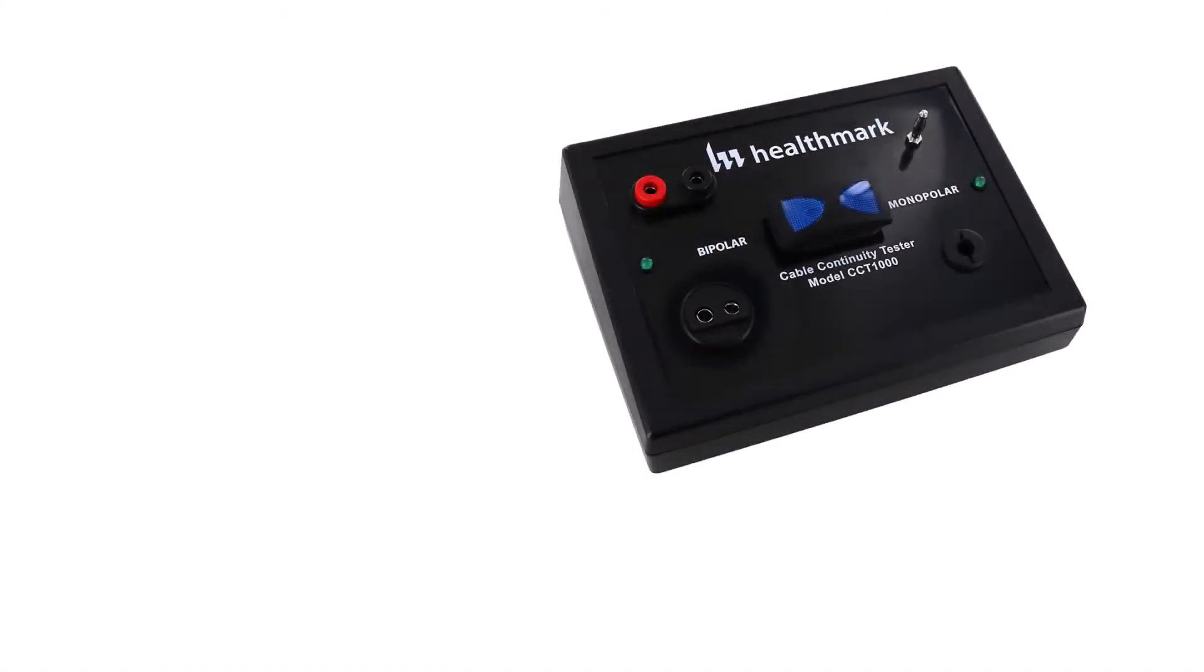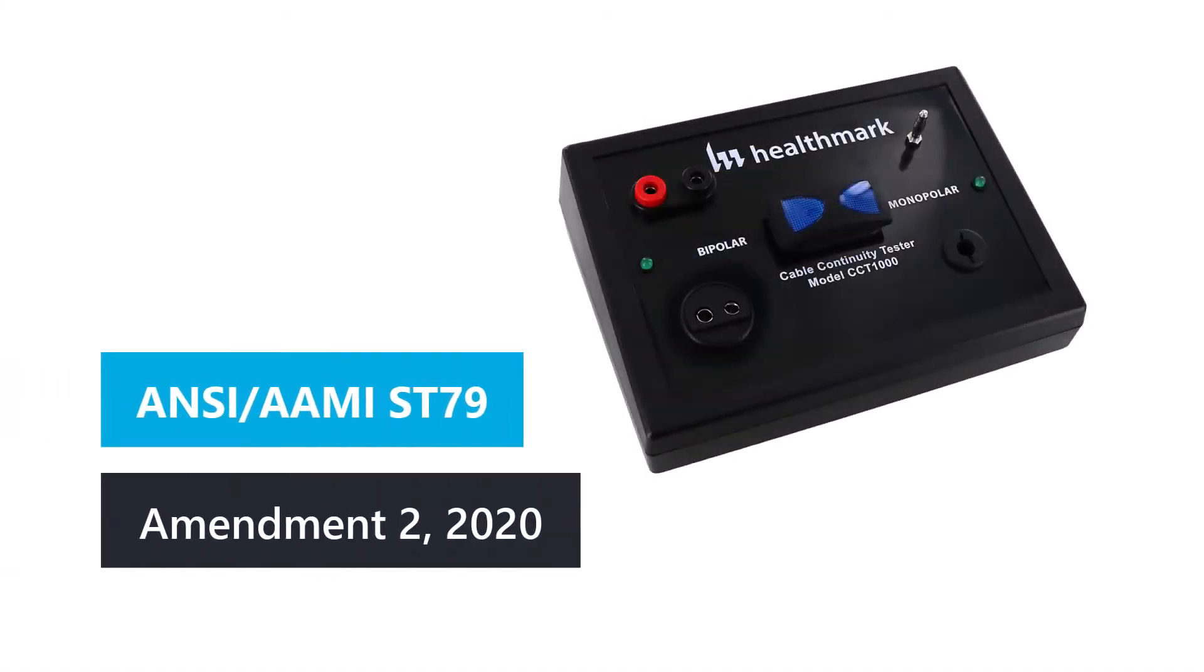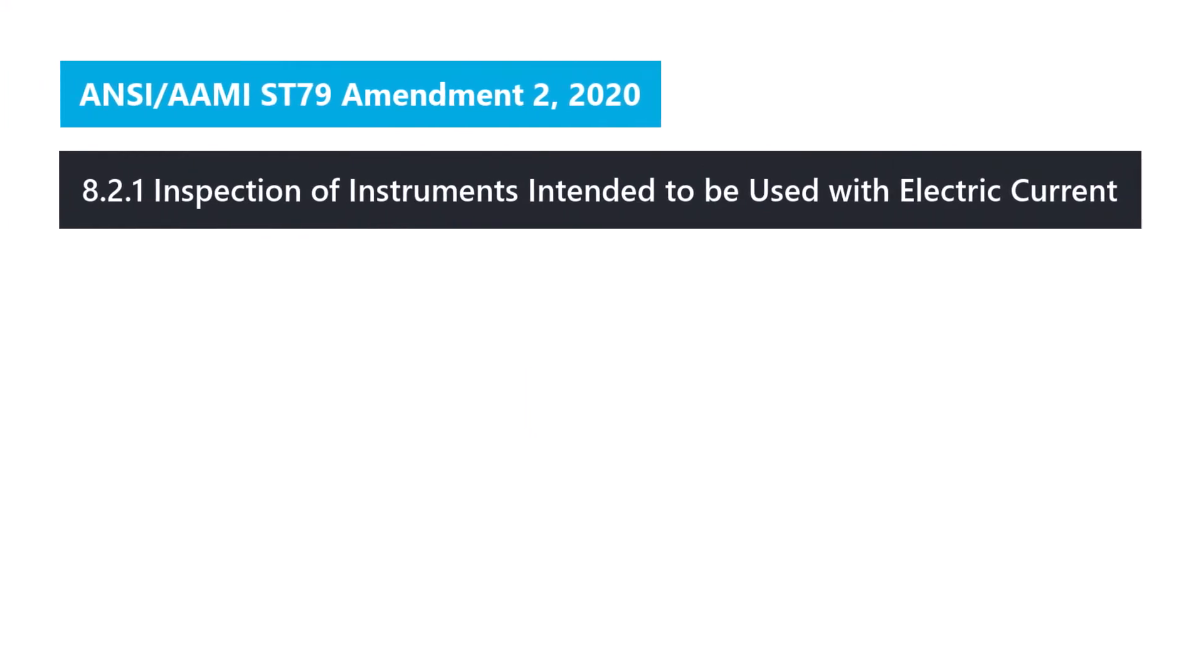The cable continuity tester can help you meet the recommendations and standards of the ANSI AAMI ST79 Amendment 2 under 8.2.1, which is the inspection of instruments intended to be used with electrical current.